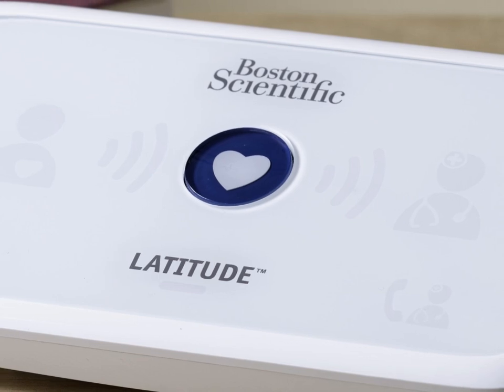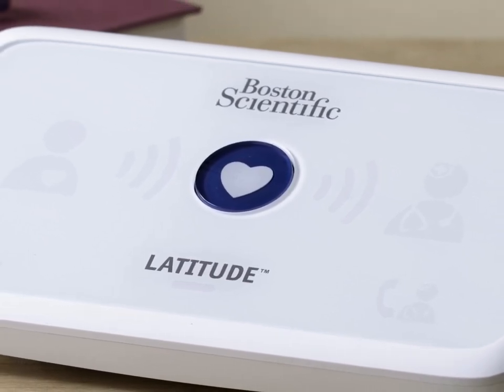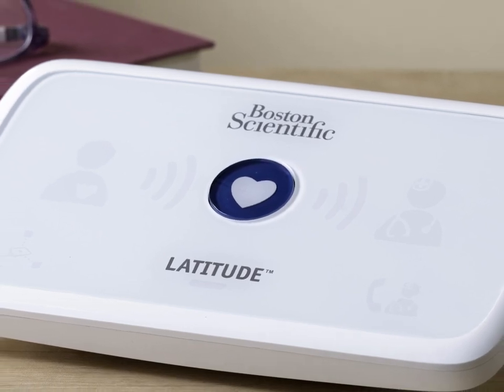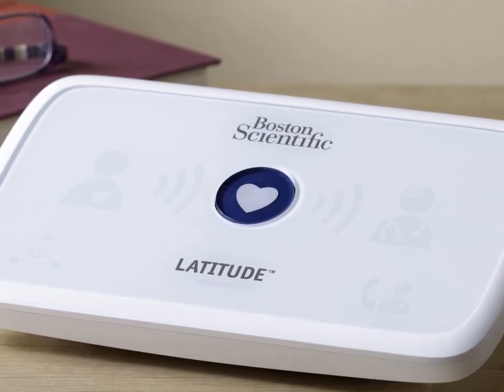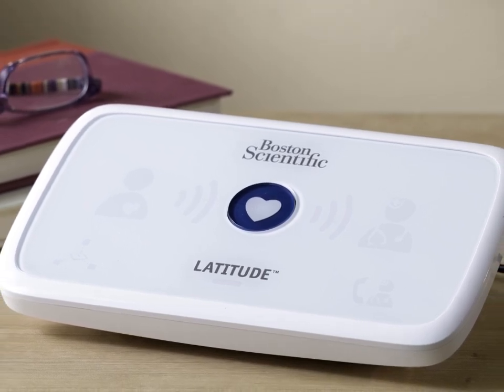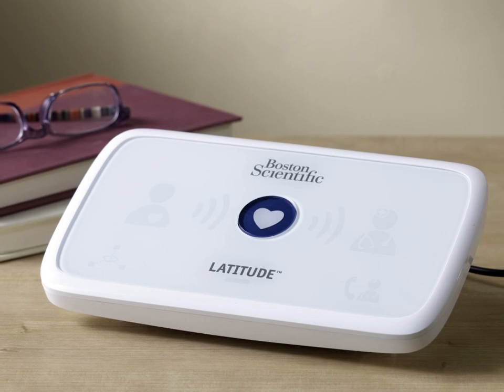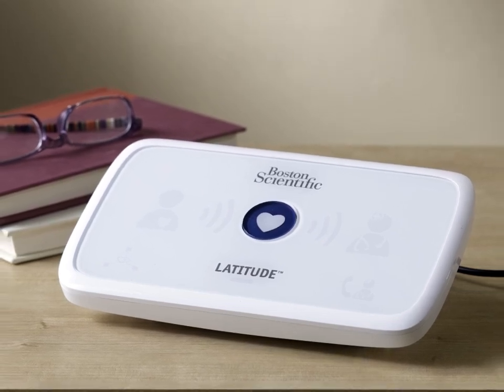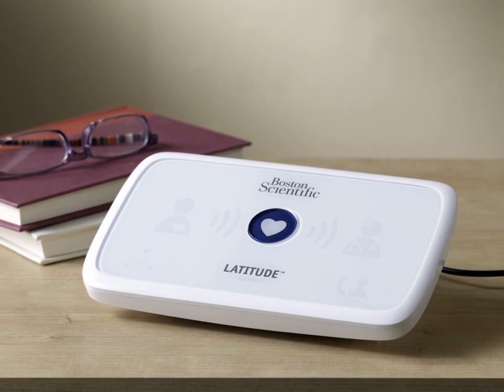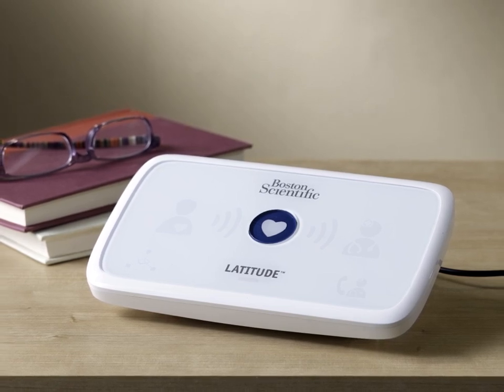In this example, where the new implanted device can be monitored by the same communicator, no additional action is required by you or your team. In addition, the patient will not need to take any action in order for the communicator to monitor the new device. If the patient has a status of monitored, the communicator will automatically receive the updated device information within seven days, and will begin monitoring the new implanted device at that time.